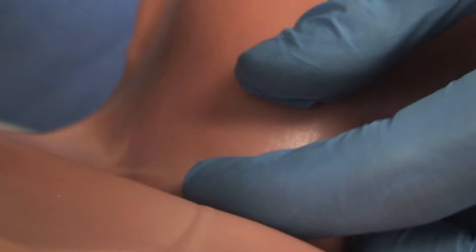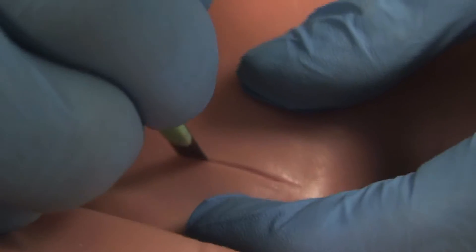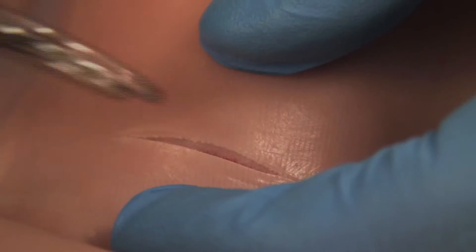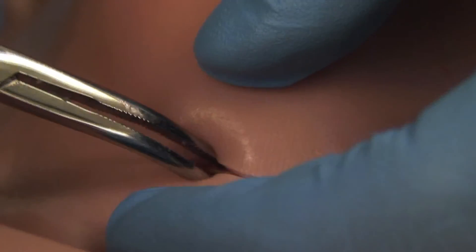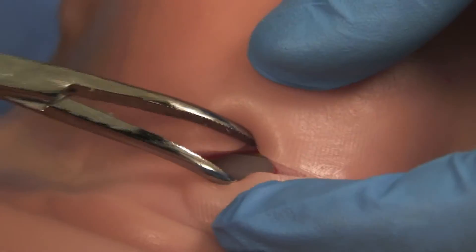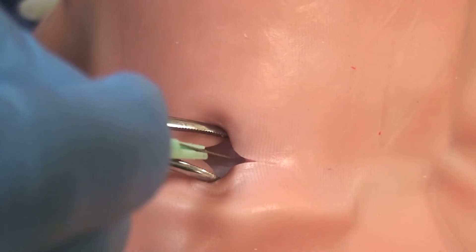Next is the tracheostomy. Here, like with all other procedures on the TraumaMan, notice that the physical body form itself can be used to find natural landmarks before incision.